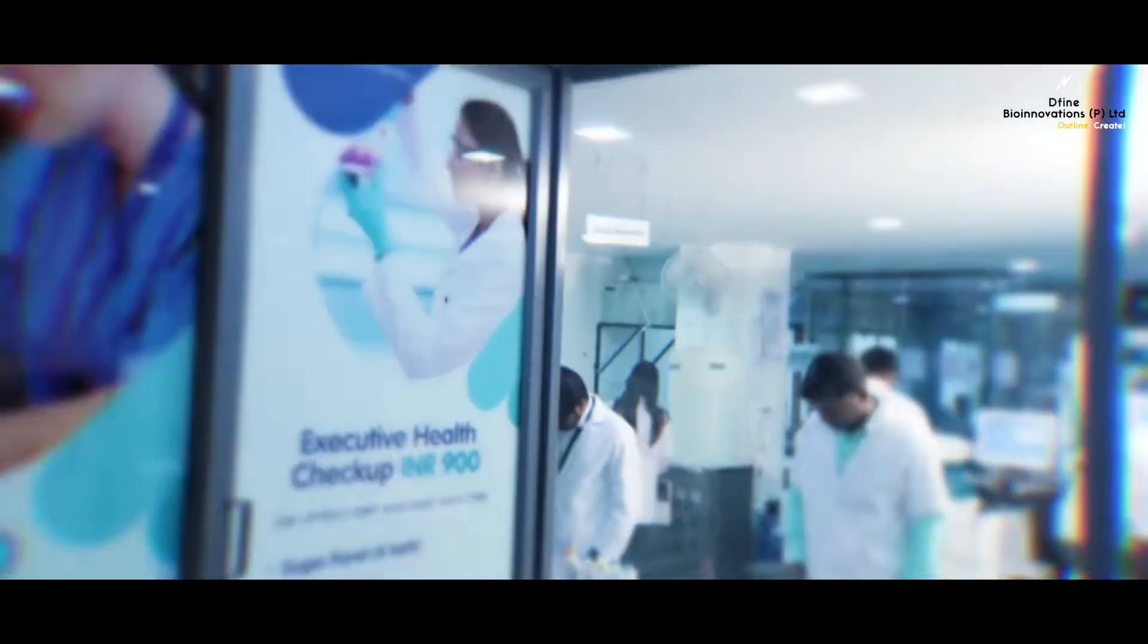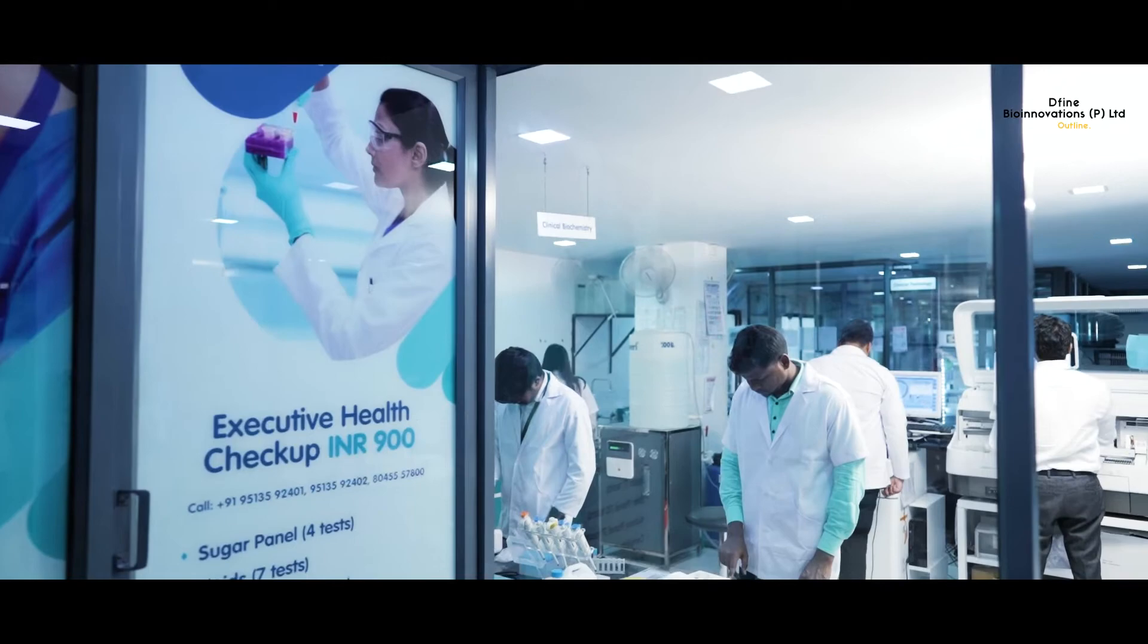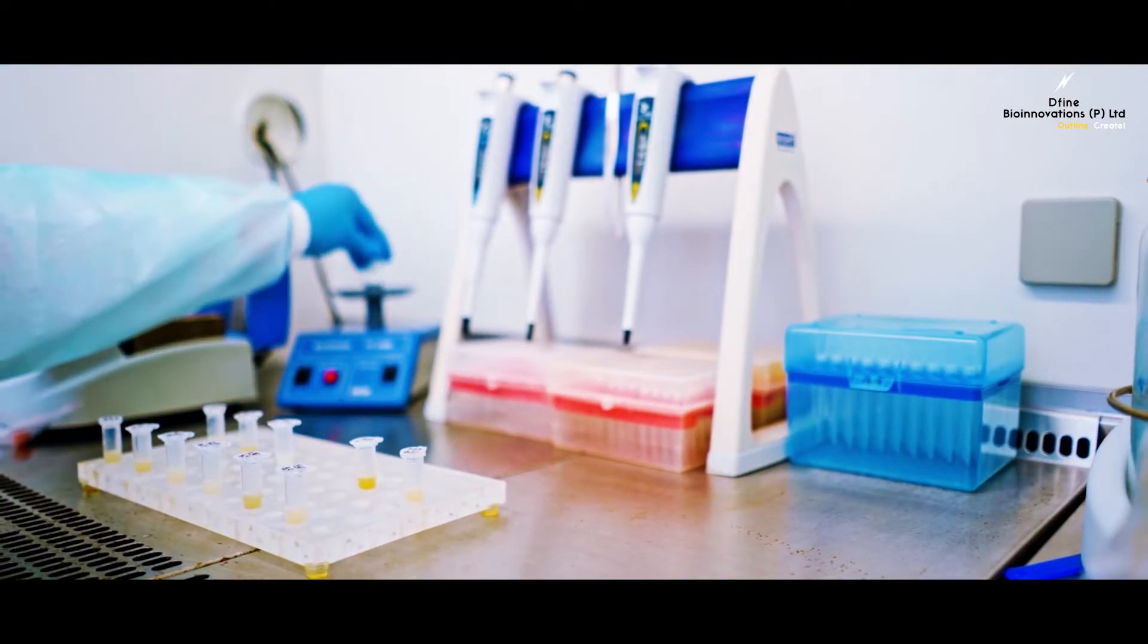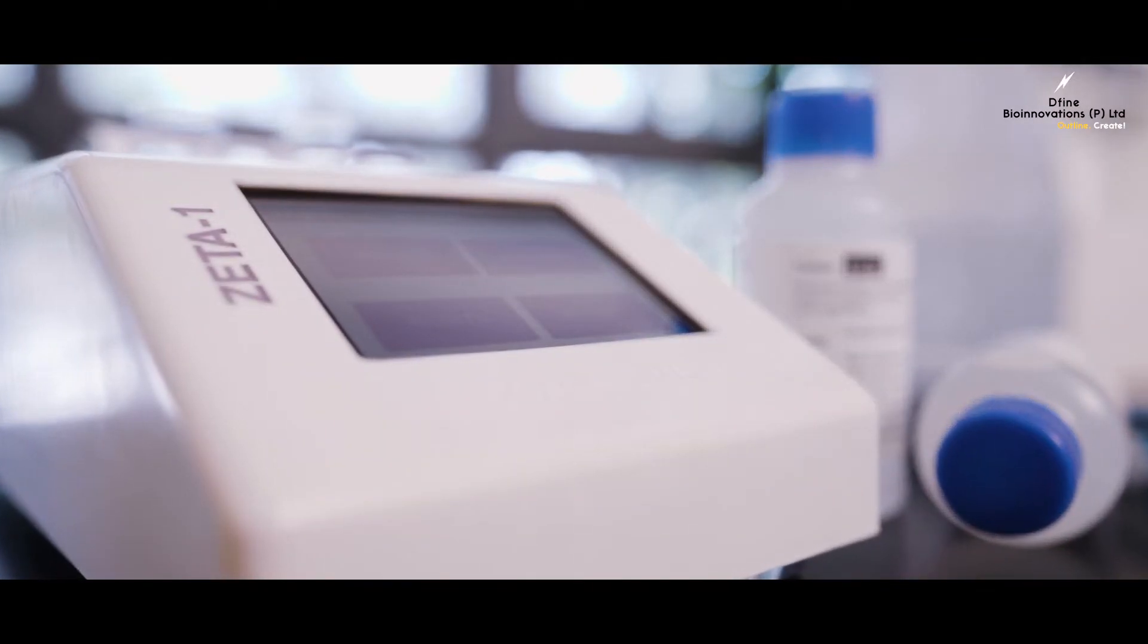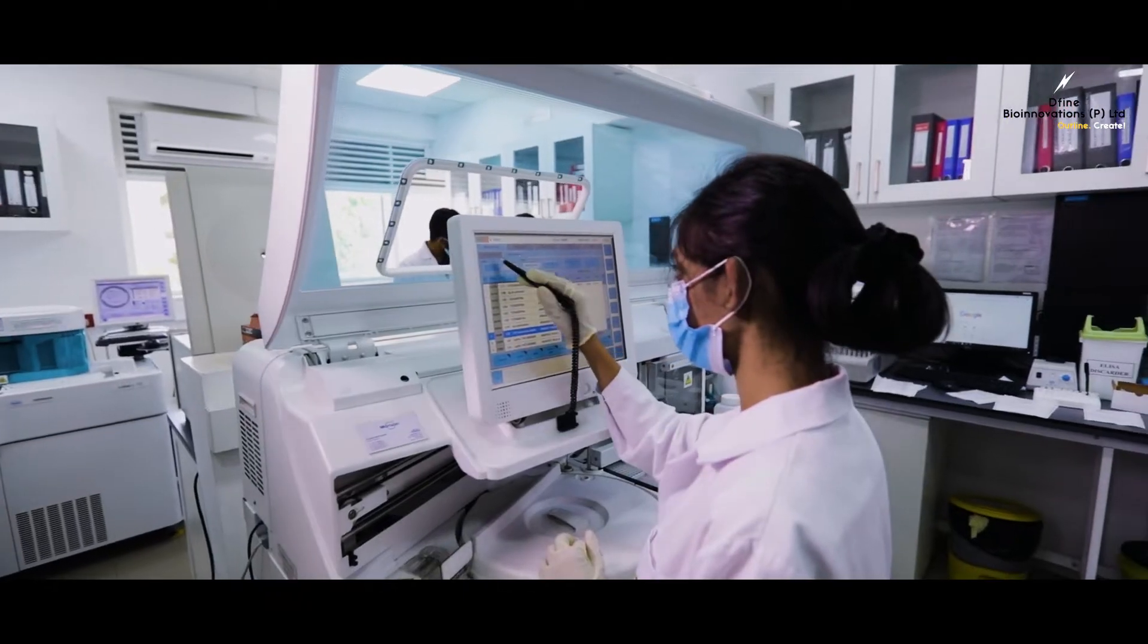Zeta-1 is tailored to meet the coagulation testing needs of small labs and OPD clinics. It also serves as an excellent backup for large labs.